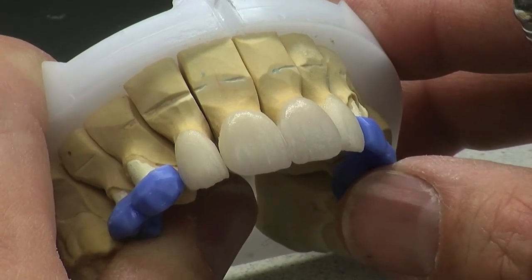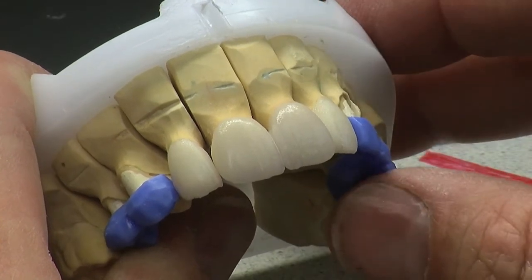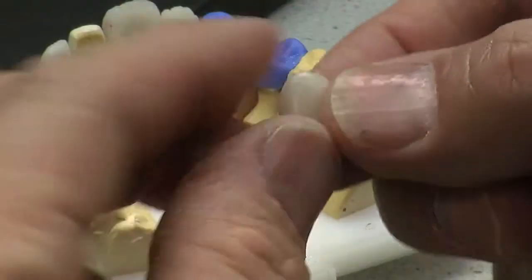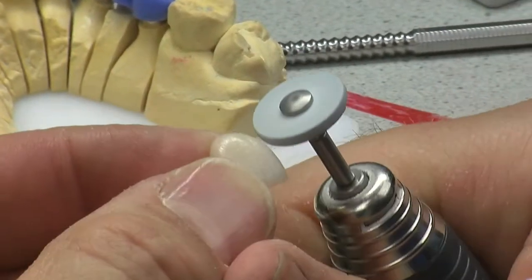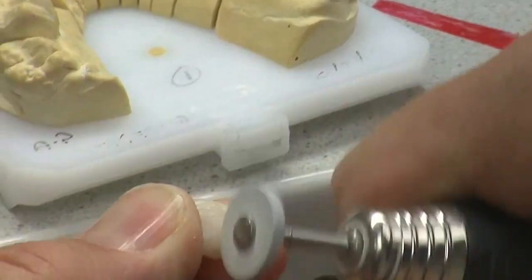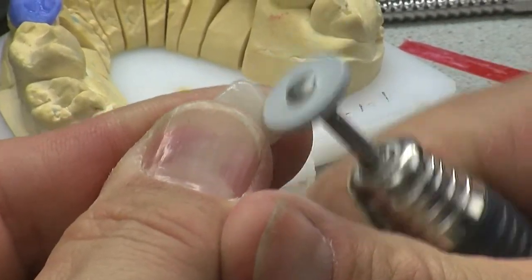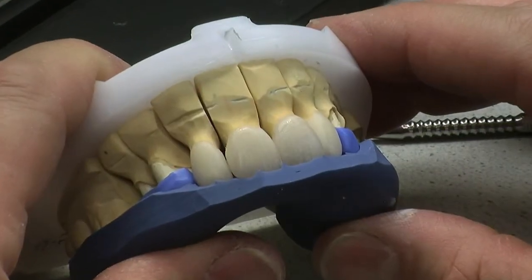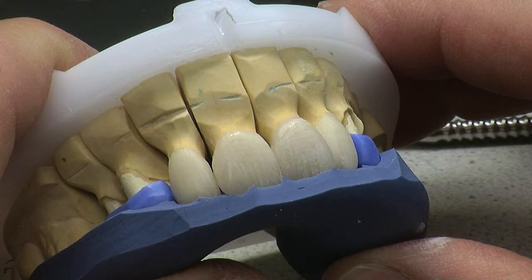Effectively, I do very tiny adds. I'm really pleased with these — they've gone really well. I'm just now going to touch that contact in and then try it into the putty. I'm really pleased with my build up, and trying them in against my putty, I'm on the money.